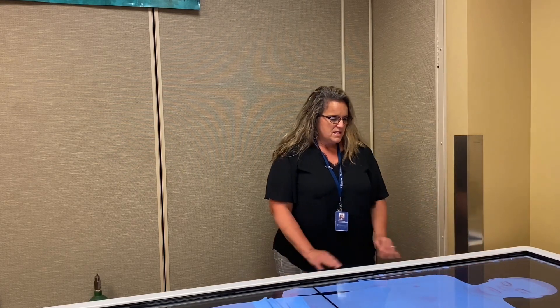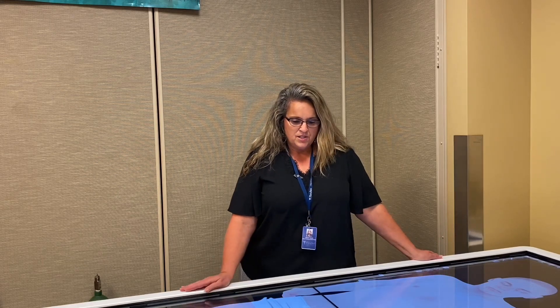This piece of equipment will allow our students to see the different levels of an individual's body or anatomy, and we are going to do a demo here in a minute for you. I'm asking Ms. Allison Adams, the department head of nursing, to come up and help me with a demo.